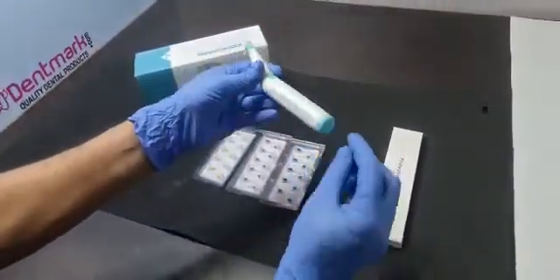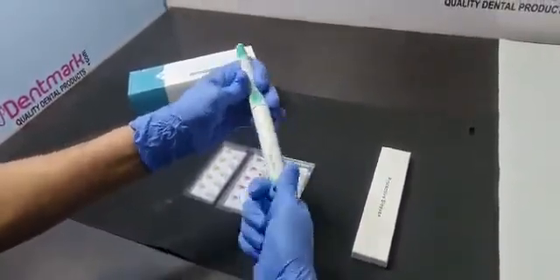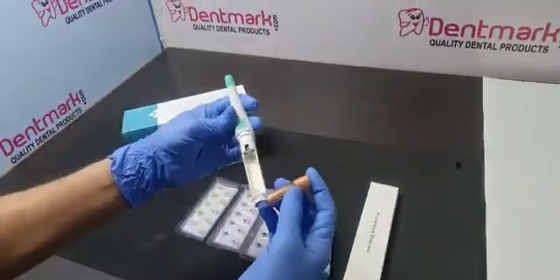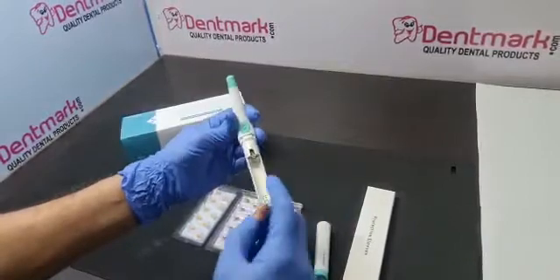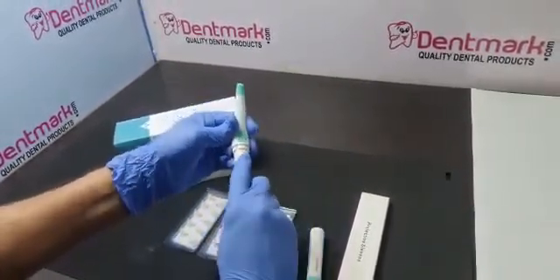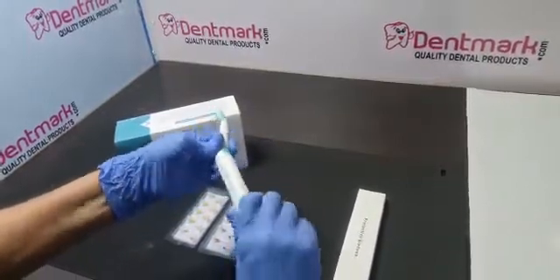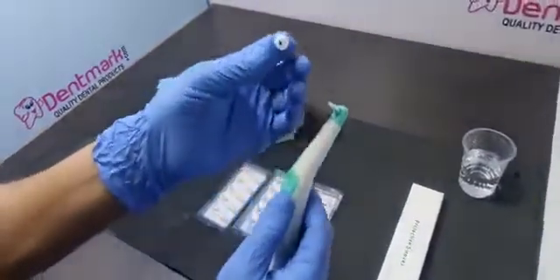To insert the battery, take the lower part, remove it by moving it anti-clockwise — there is a gap, take it out. Use a quality battery as it gives good life for your product. The negative part goes inside facing down. Fix it and insert the battery cover — now it is ready to use.